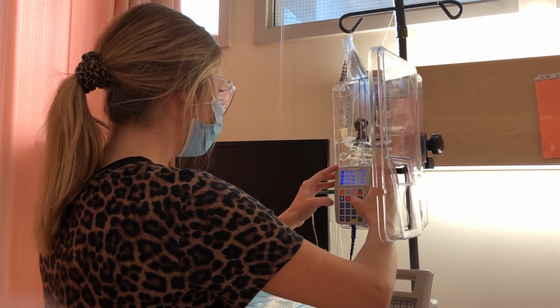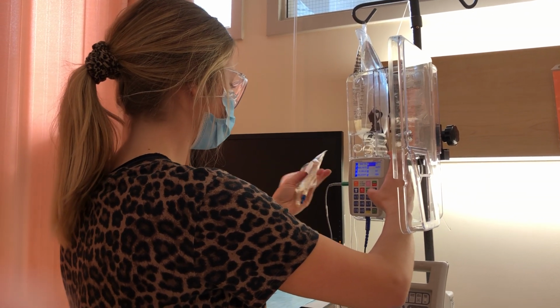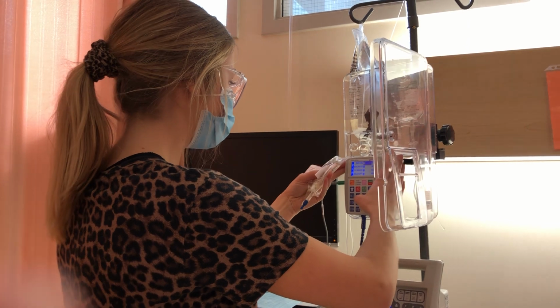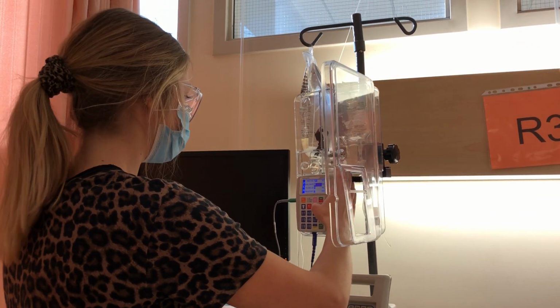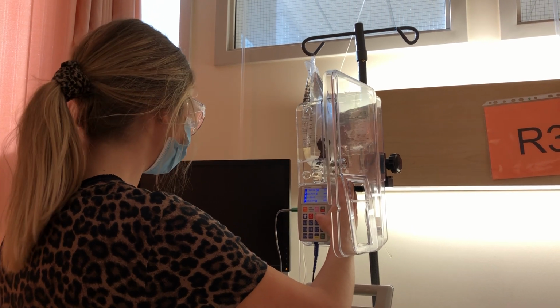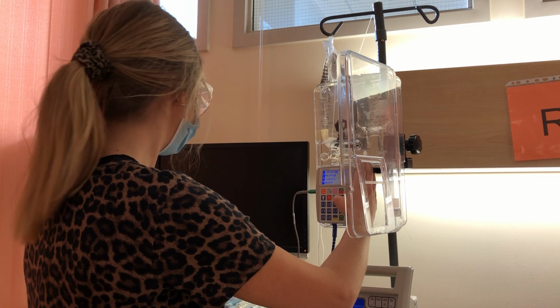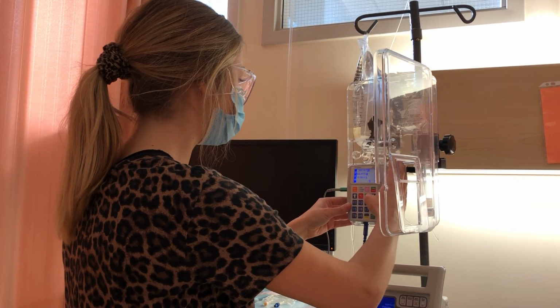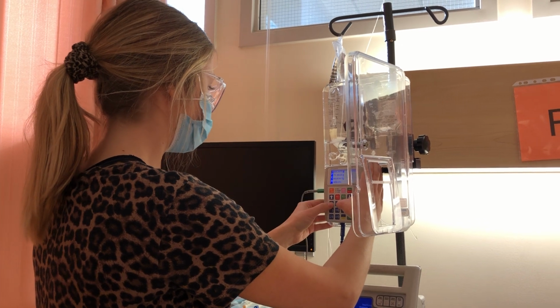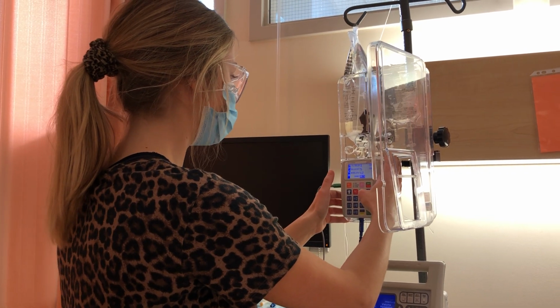Yes, okay. The bag volume, I have 50 mLs in total because I have my 45 mLs of normal saline and my 5 mLs of morphine, so I have 50. My basal rate, there is no basal rate. The patient bolus, every time he hits the button, he's going to get 1 milligram of morphine, and he can hit the button as much as he wants, but he'll only get medication every 5 minutes. And so then he'll get a total of 12 boluses per hour if he wants to. And I'm going to hit yes to be done.